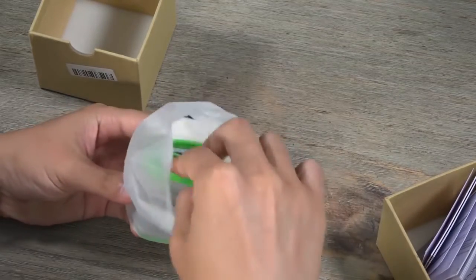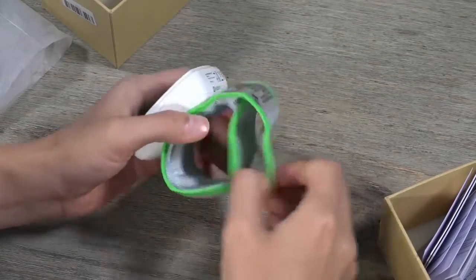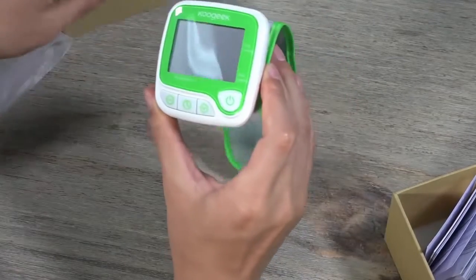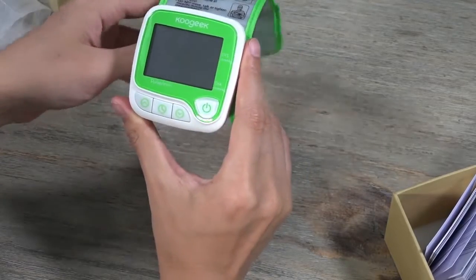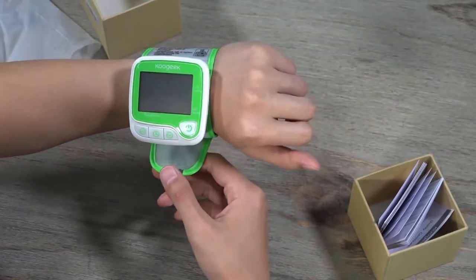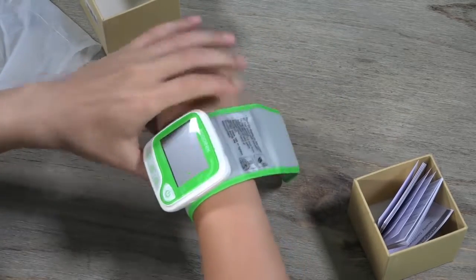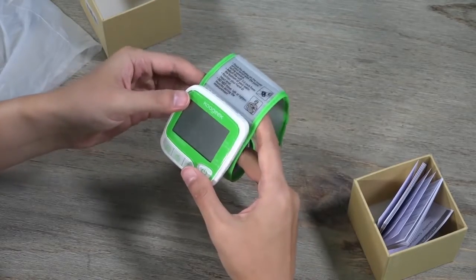The device is simple, but not simple in usage. A lot of people, when they get the device from the package, would just wear it this way — but this is the wrong way. And some people would even put it on the right hand, which is even more wrong.